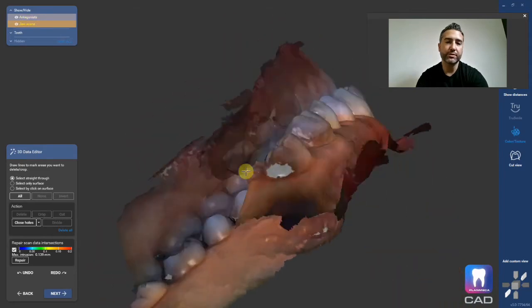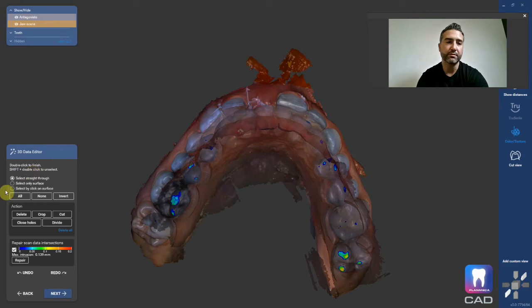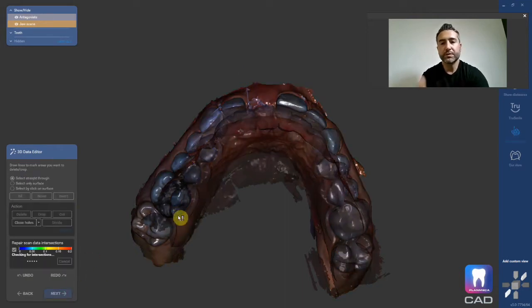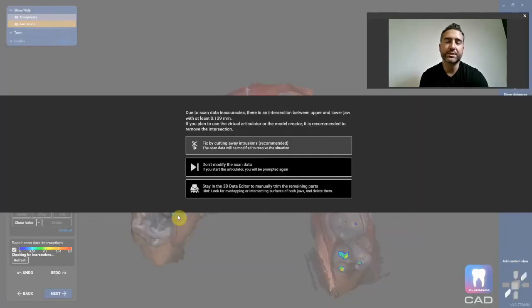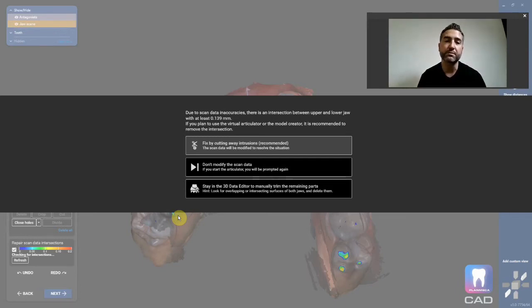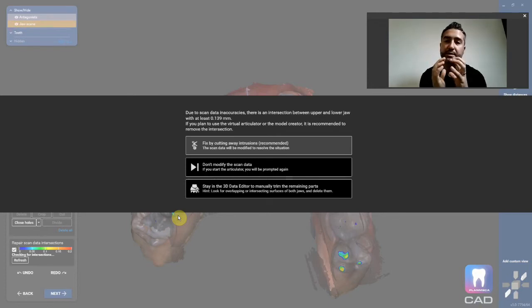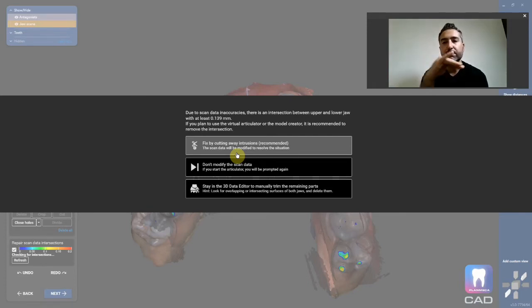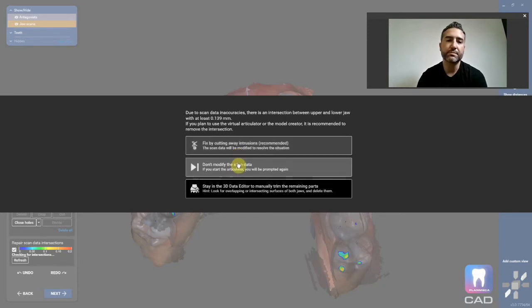3D data editor — this is if you want to trim any flash. I'm just going to cut that out and hit delete, but you could optionally skip that step. If there are over-intrusions on your bite — all digital impressions have these over-intrusions. Some people say it's because the mandible flexes as they close down, capturing that versus physical impressions where it's impossible to get over-articulation from stone. It's not about inaccuracy of the software; the software is accurate and it's showing the flexure of the mandible, PDL space flexing and mandibular flexion. For partials, I don't like to modify the scan data because if you're doing lingual plating or rest seats, the software will ditch the real teeth and the partial won't seat. So I'm going to hit 'don't modify scan data.'